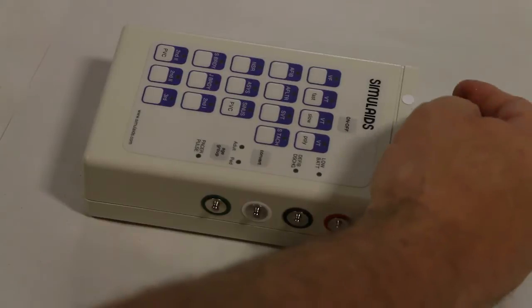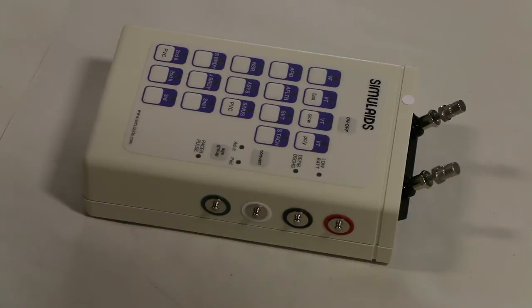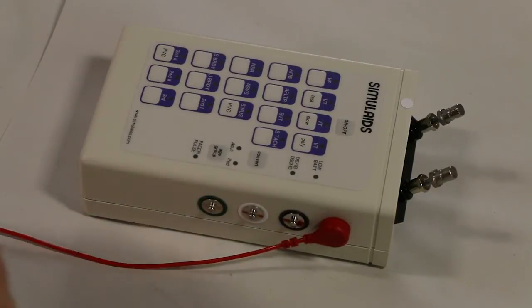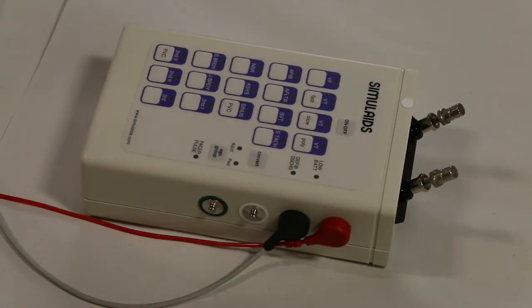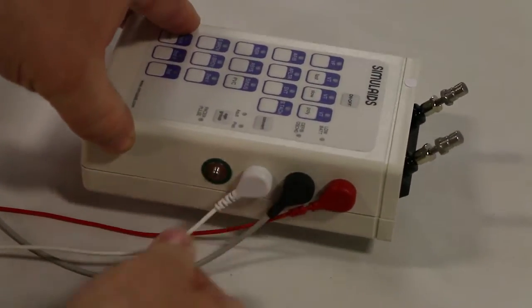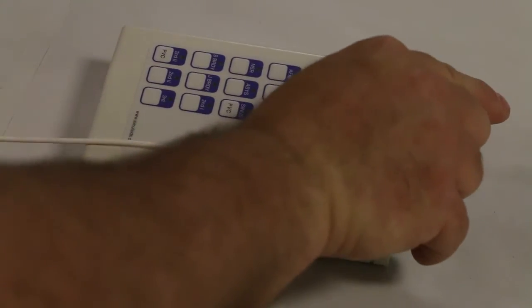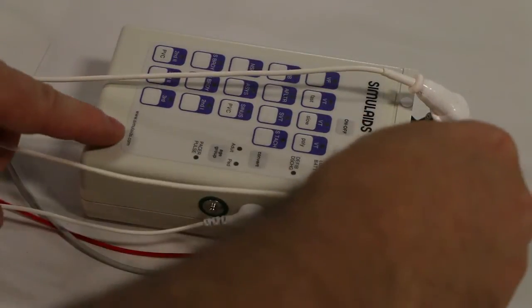Once the posts are in place, attach the color-coded leads from the ECG to the sites that match on the box as shown. Then attach the defibrillation training cables as shown. Note the white dot to help with the orientation.